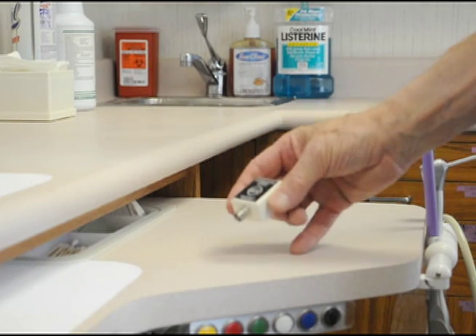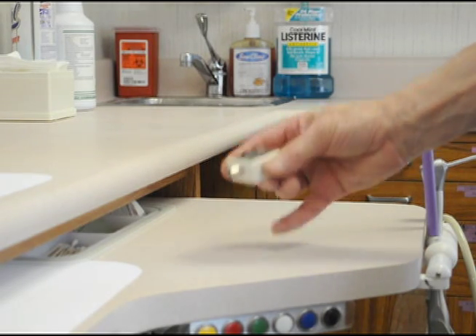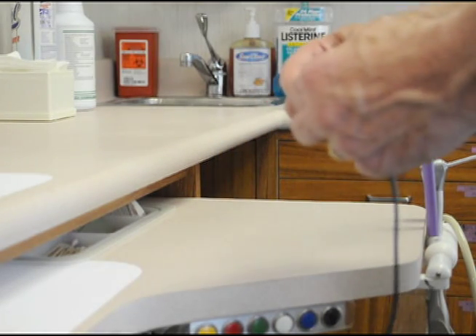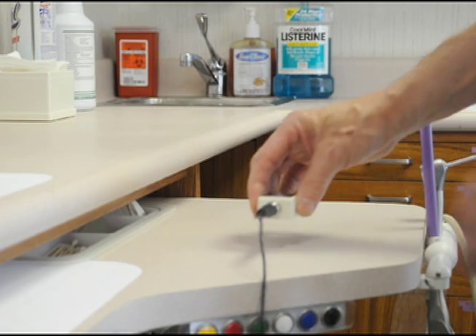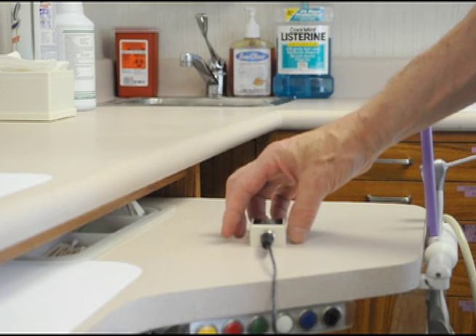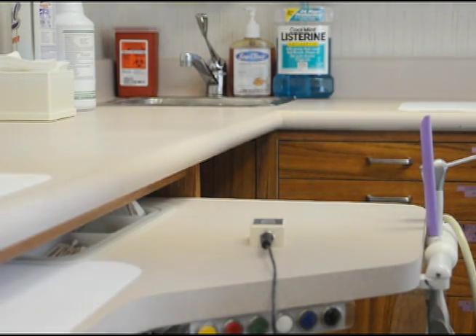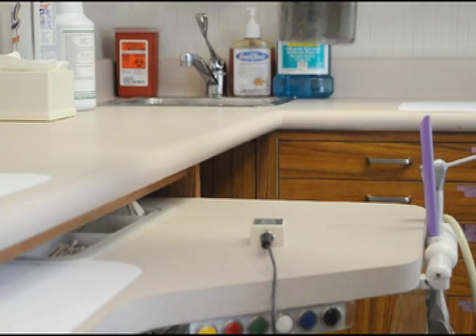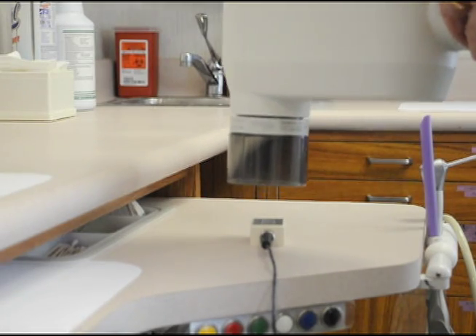This is the XD88, it's an x-ray detector. You connect it to an oscilloscope, put it down on a bench, and you move the x-ray to point directly down on the detector.